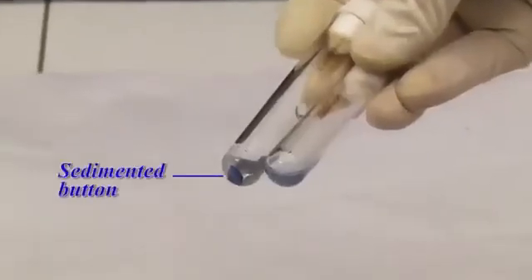After incubation, dislodge the sedimented button gently and observe for agglutination.